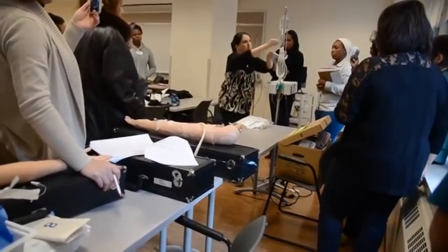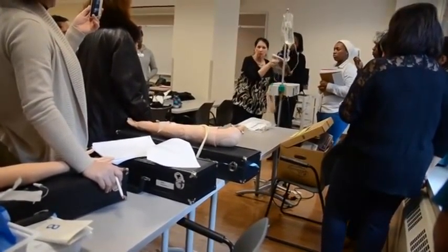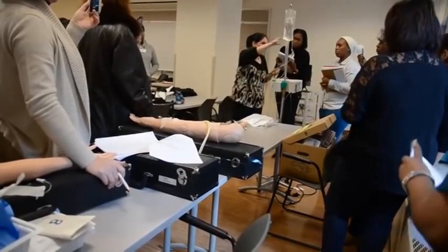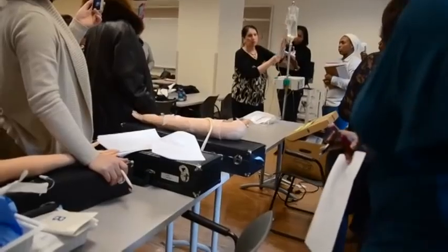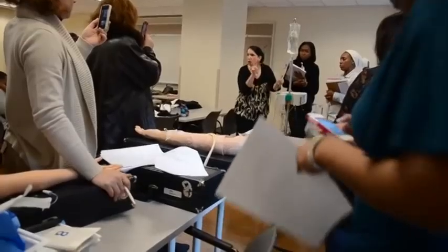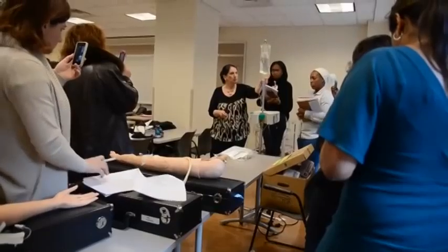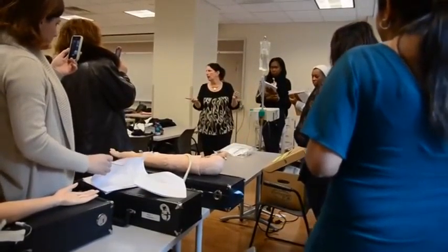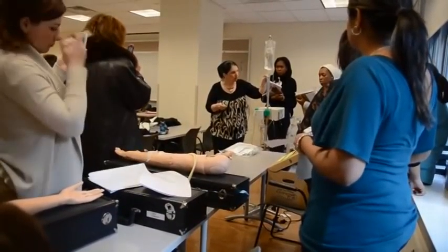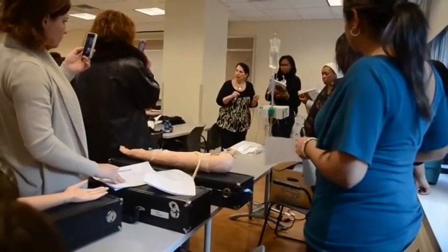Sometimes you'll walk in and find a patient with an IV pole that has a few of these because they have three antibiotics — each one has to have their own bag. The bag is supposed to be labeled, and every tubing has to be labeled so you know when to change it. I'll know in 24 hours from the time I put this up that I have to change it. So if today is Friday, Saturday at 12 o'clock I have to take this down. The other tubing is good for 96 hours.